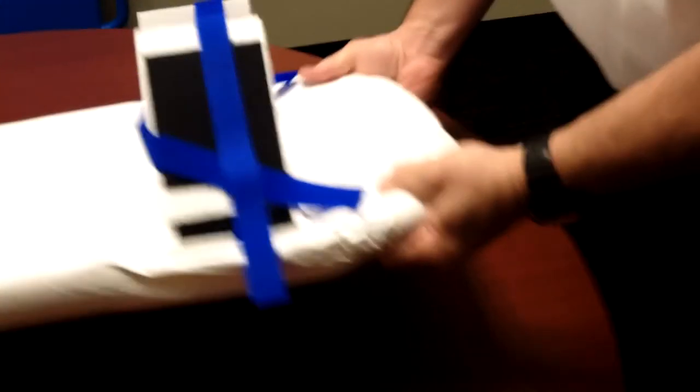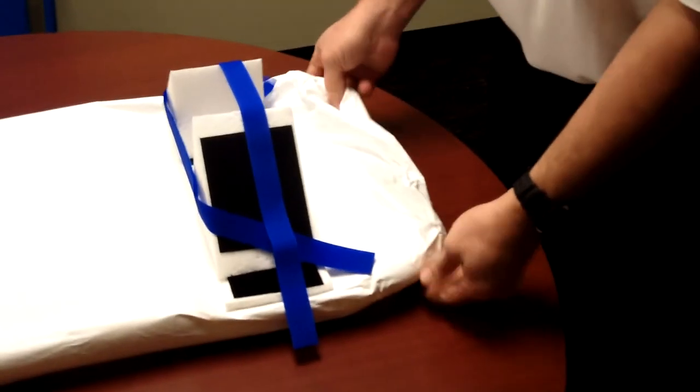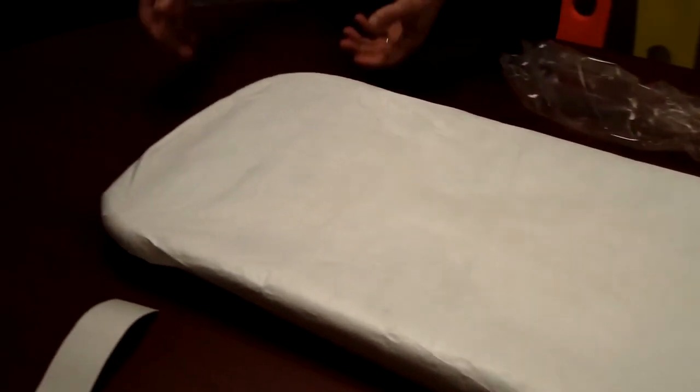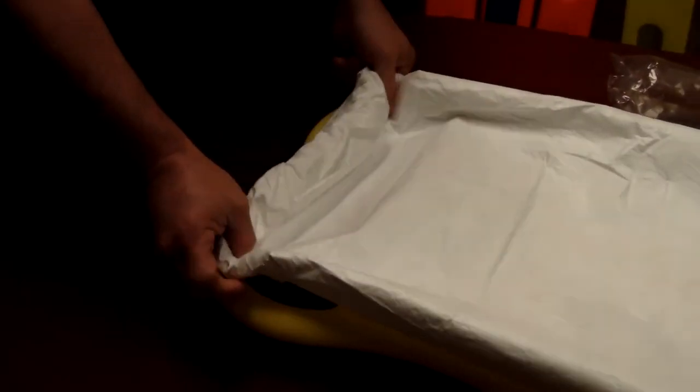And if you're still not comfortable with the cover being there, it's as simple as just popping the cover off and you have access to your handles fully. You can do the same with the foot end down here as well.